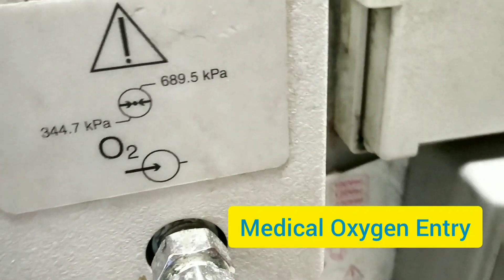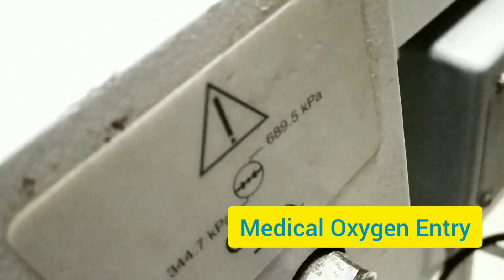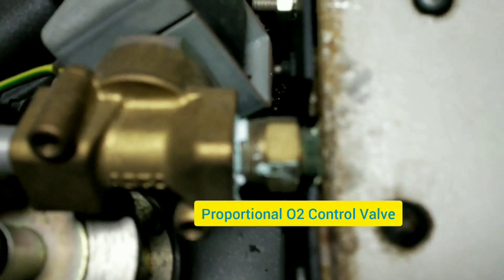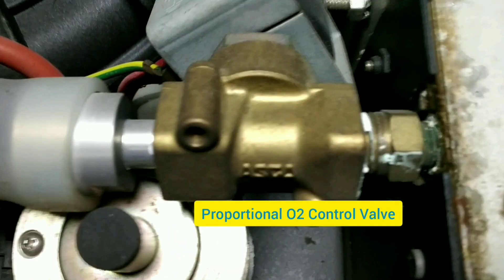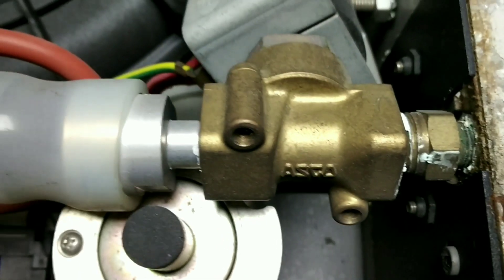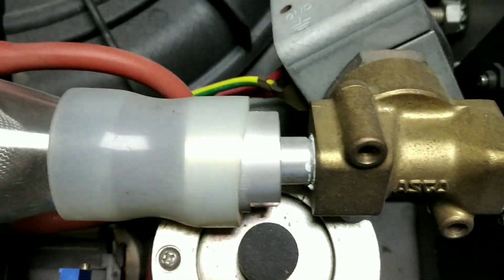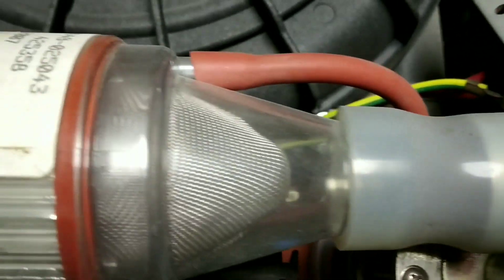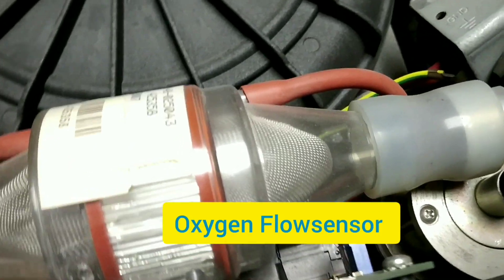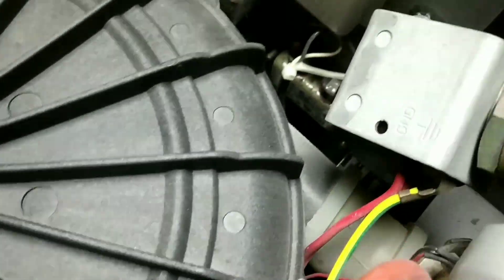This is the oxygen inlet where oxygen enters the ventilator. It then goes to the O2 regulator and the proportional O2 control valve. From the oxygen regulator it goes to the proportional control valve, then to the oxygen flow sensor. You can see the complete structure — it's the oxygen flow sensor.